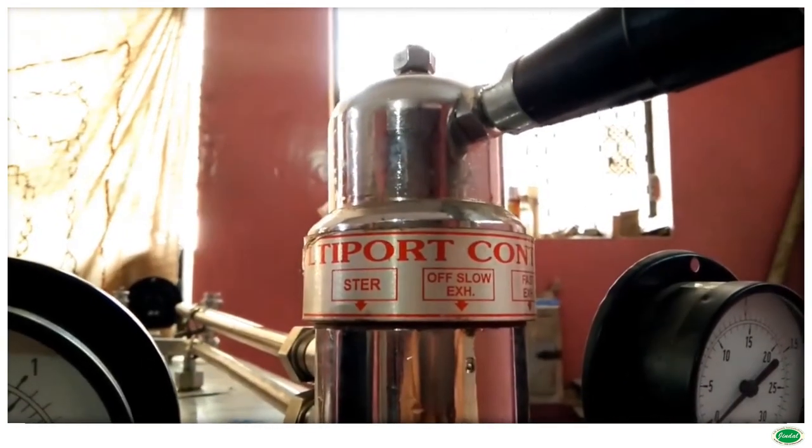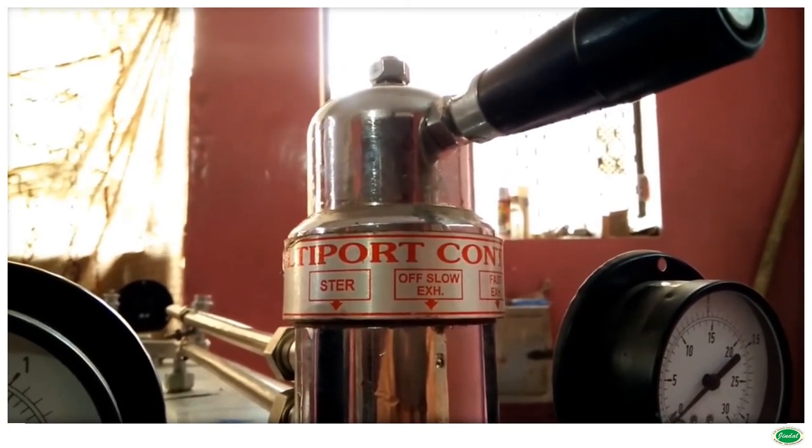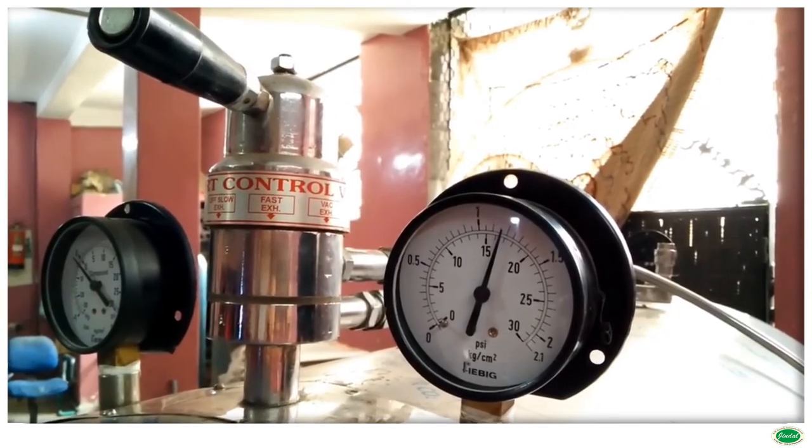It is covered by polished stainless steel sheet for an elegant appearance. The sterilizer has a hinged self-locking single-piece thick stainless steel plate door and cannot be opened when under pressure.